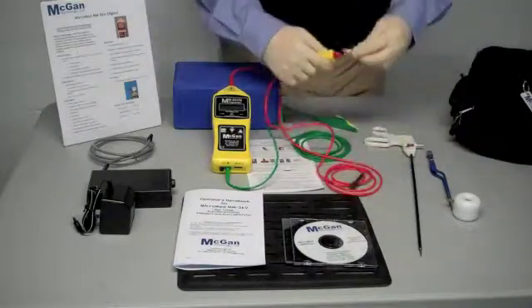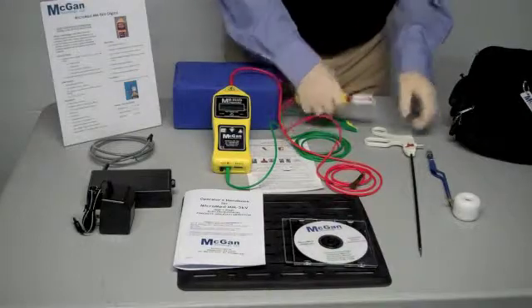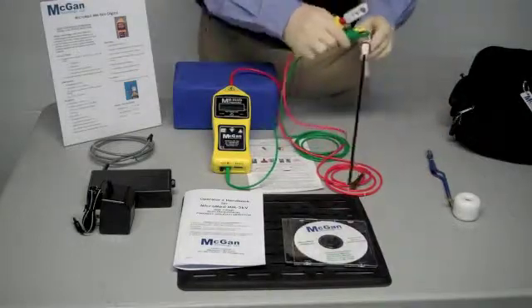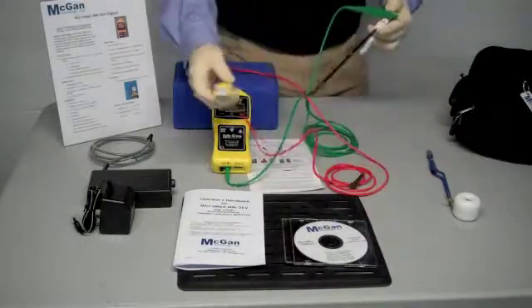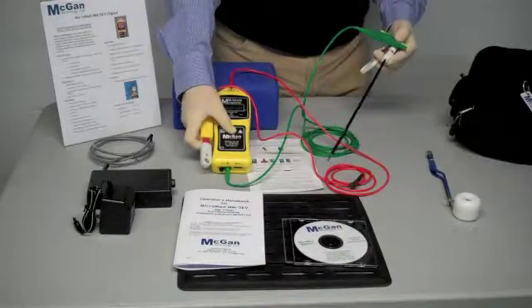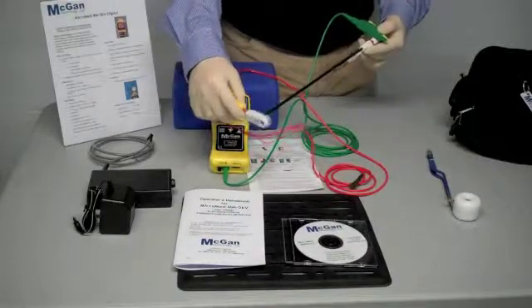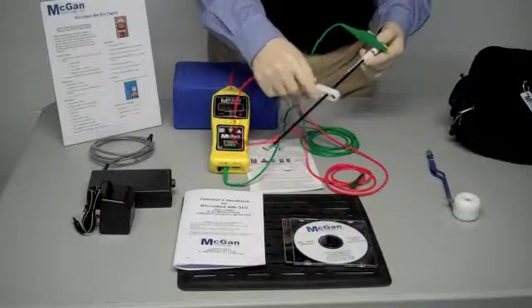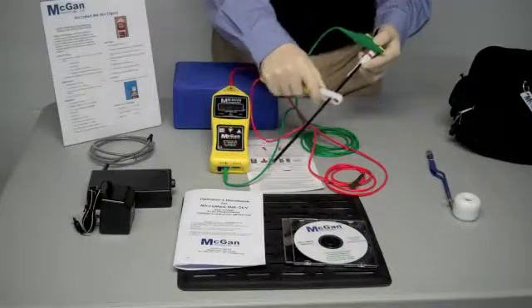Now we also have a tri-hold unit on the electrode side, which allows you to use different sized laparoscopic instruments. We did the same procedure as we did with the ring electrode, only now we'll slide it through the five millimeter hole to find where the faults are on the unit.